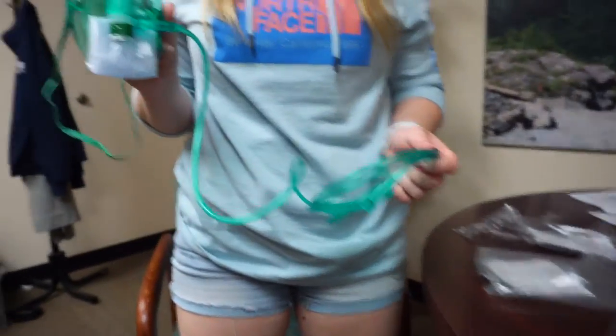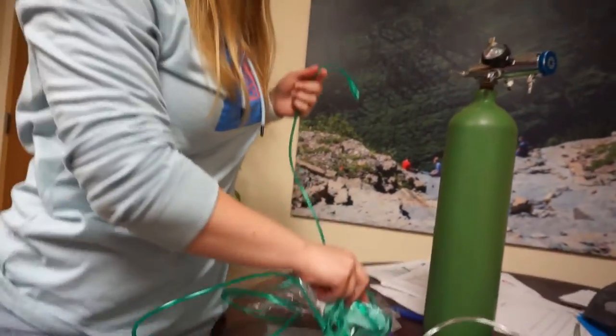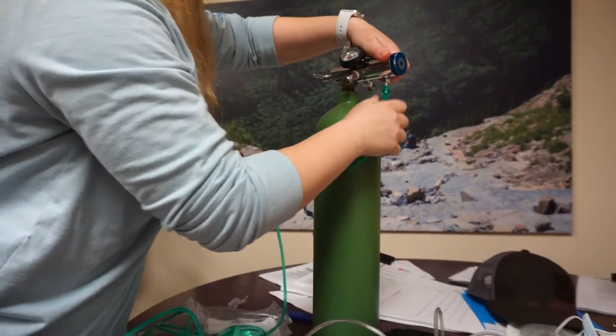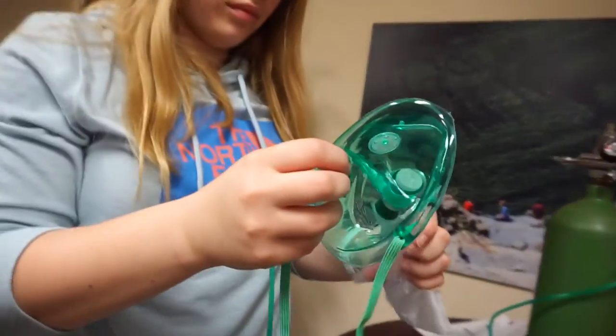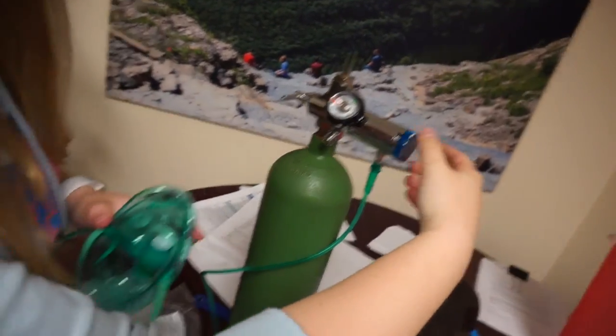The main difference between the nasal cannula and the non-rebreather mask comes down to necessity — does your patient actually need oxygen? If they do need oxygen, you're going to use the non-rebreather mask. It comes brand new in a package like this; unravel the reservoir bag and hook up the tubing. The flow rate range is 12 to 15 liters per minute, but honestly, if you plan to use this device just go straight to 15.